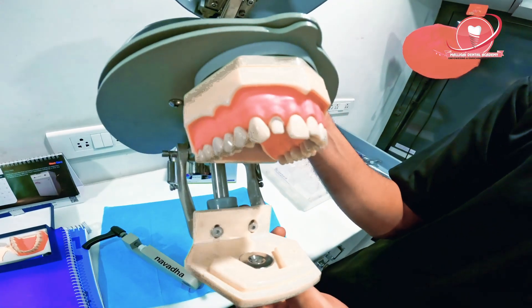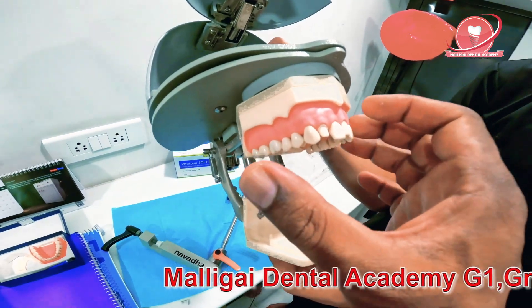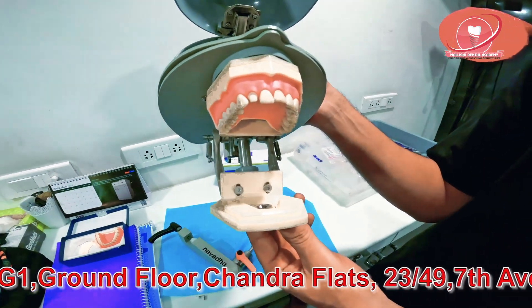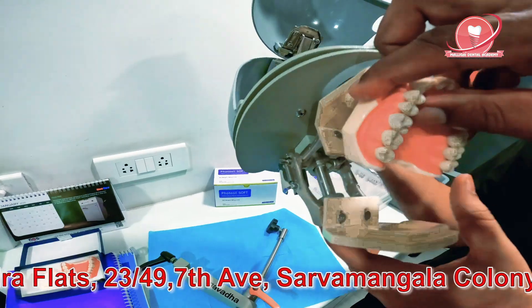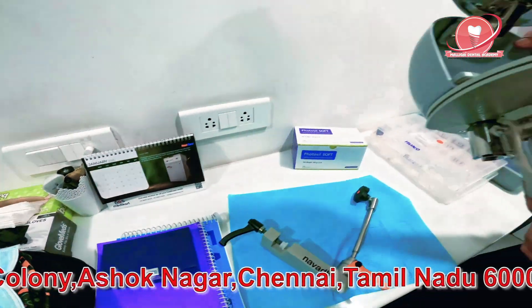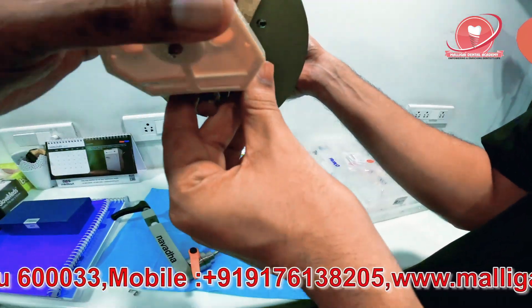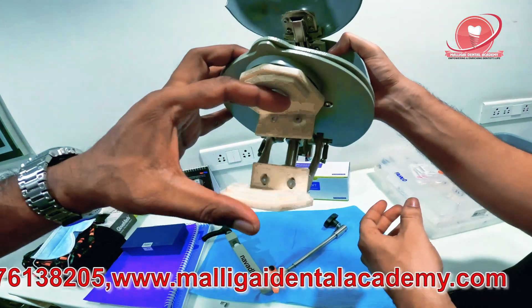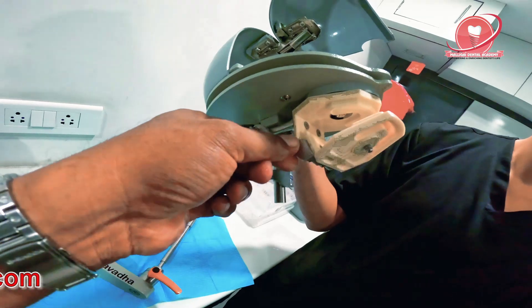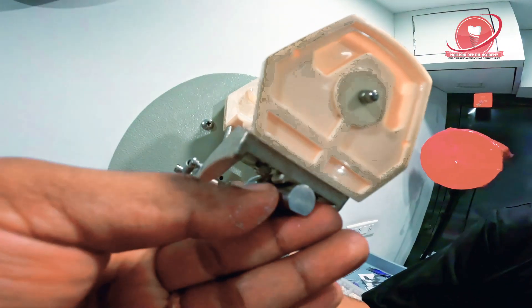Some people like magnets, some people like screw type. Though initially I found it was a bit wobbly, I felt the magnetic type is easy — easy to take photographs to see how you have done. So magnetic is easy. Just remove this — be careful while removing. A lot of people have dropped it and broken the magnetic component, some of my friends said. As you can see, this jaw is movable, but we don't really need to move it. It gets locked here with a click sound.